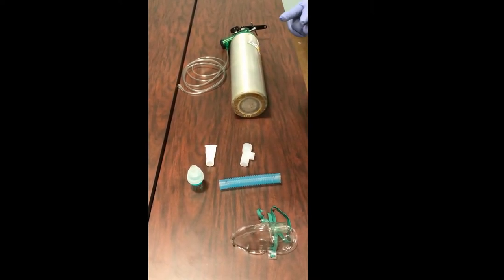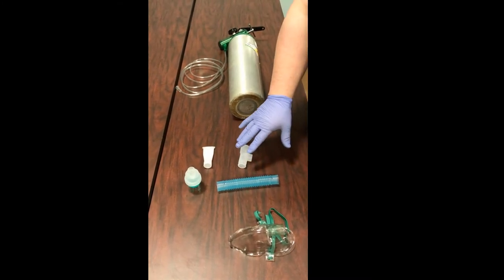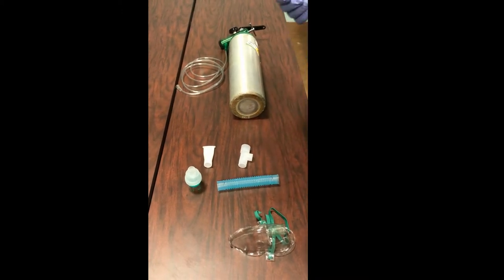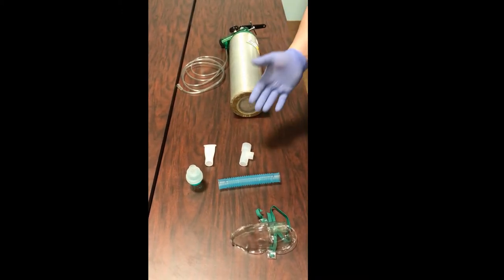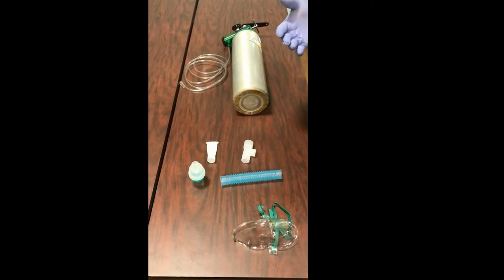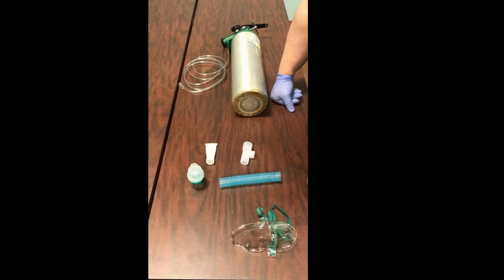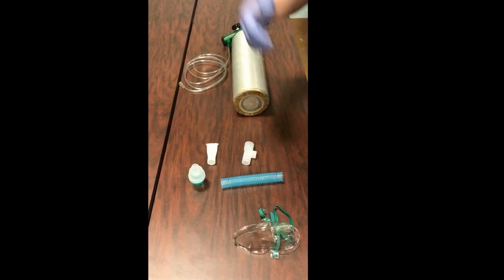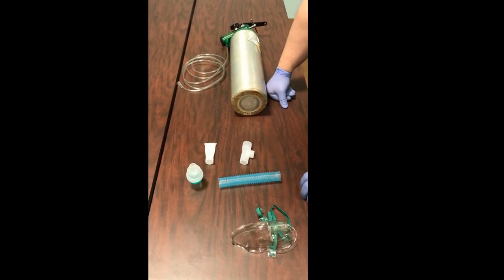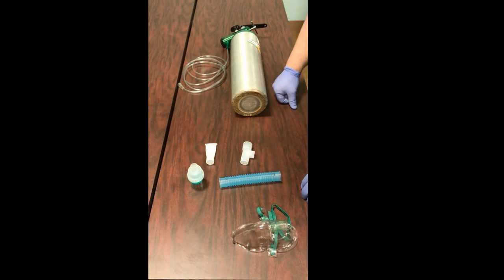There are two different ways we can administer a nebulizer. We have a handheld device, which I'll show you how to assemble, and then we have a mask. If the patient is able to hold it and breathe in and out, they're probably fine with the handheld device. If someone is tiring or approaching more significant respiratory distress, we'd look at putting them on the mask so they don't have to focus on holding it.